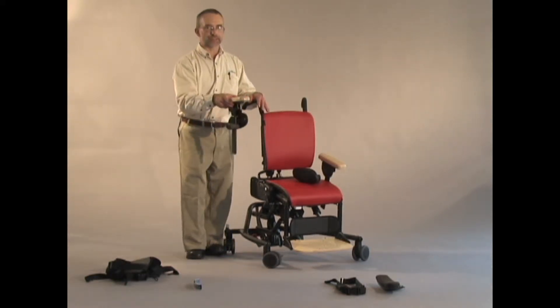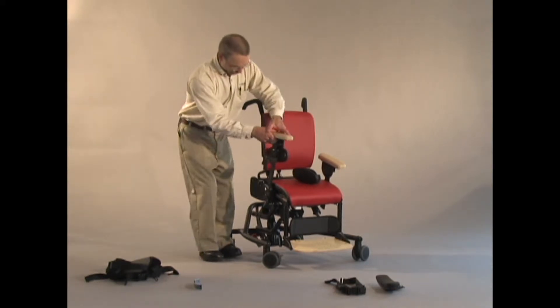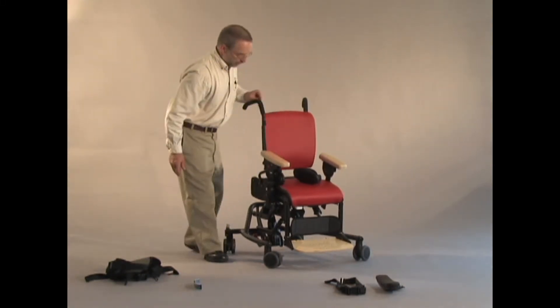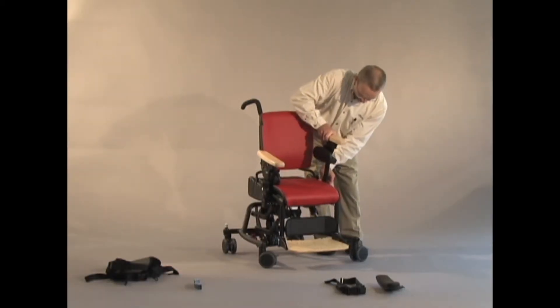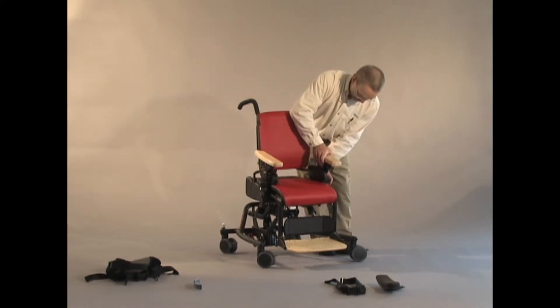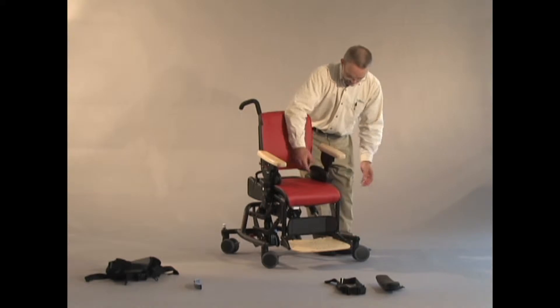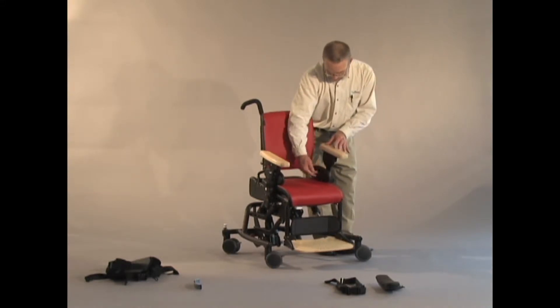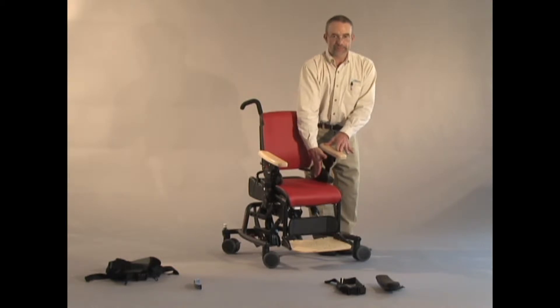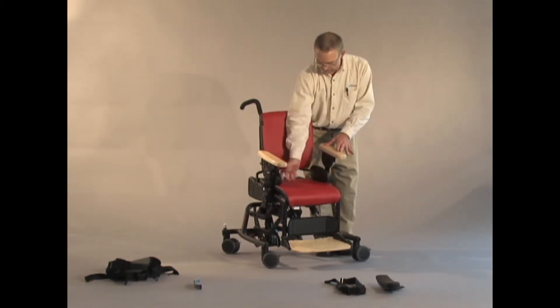The reason we did this is to aid with lateral transfers. So if you remove the armrest for a transfer, the hip guide will go with it. You can adjust the height of the armrest right through the hip guide — I still have the ability to adjust the height of the armrest — but there's a tab on the inside of this. Any pressure toward the inside face of the hip guide will lock it vertically on that armrest.